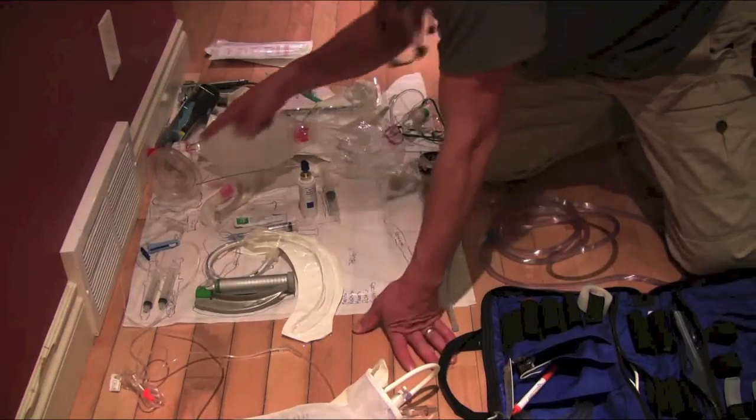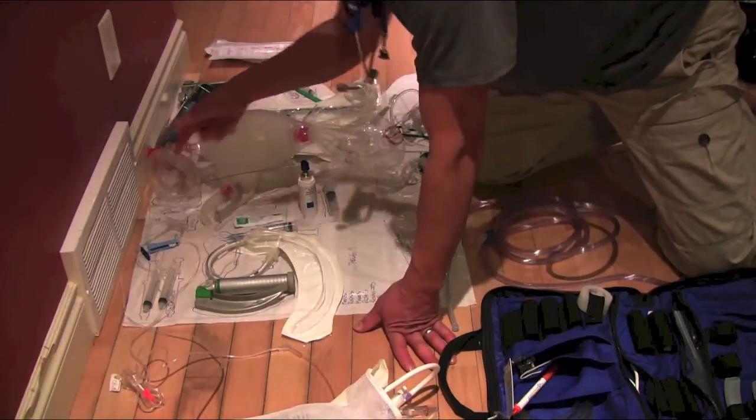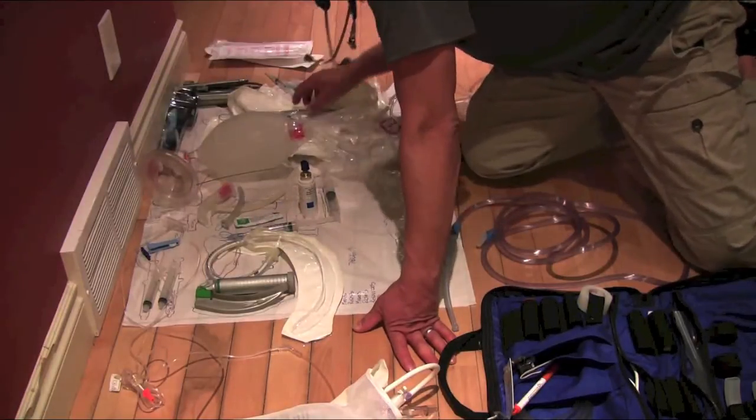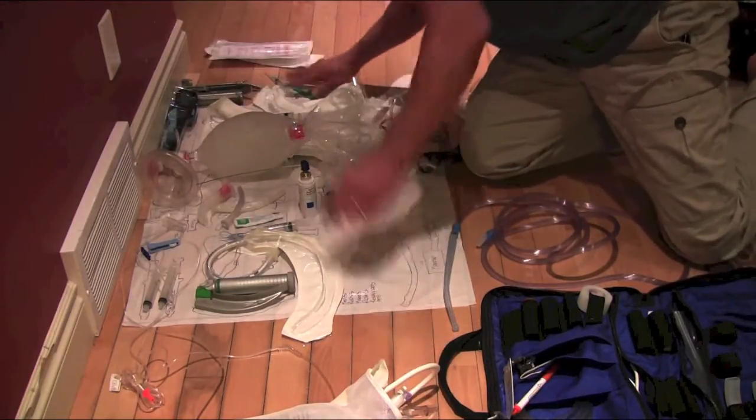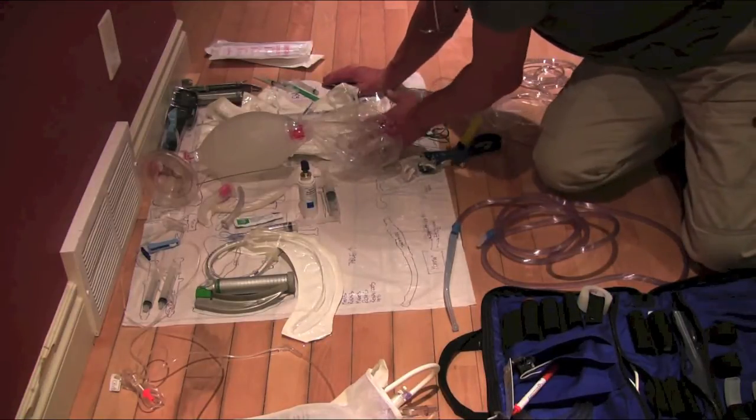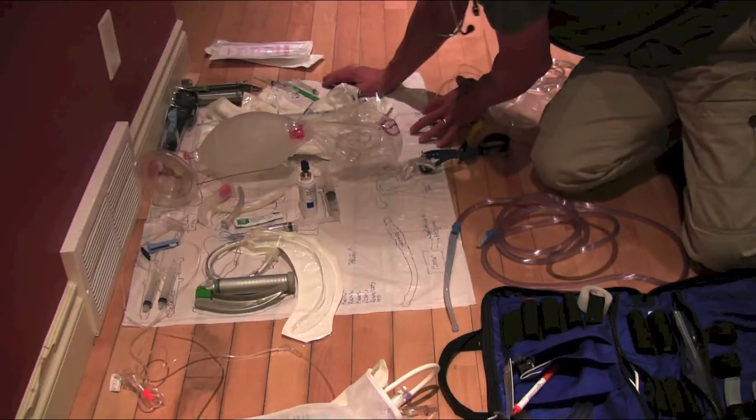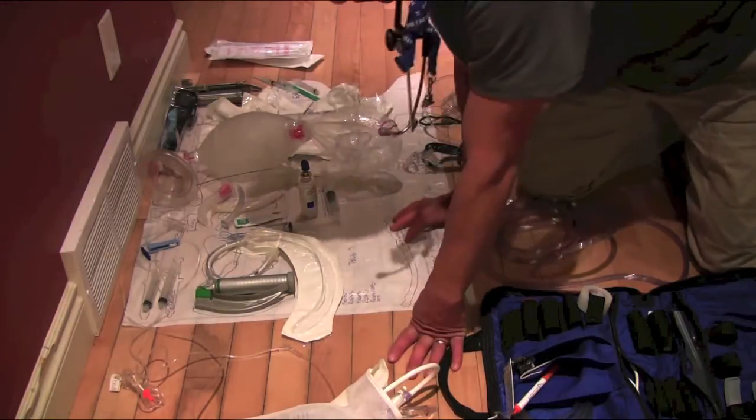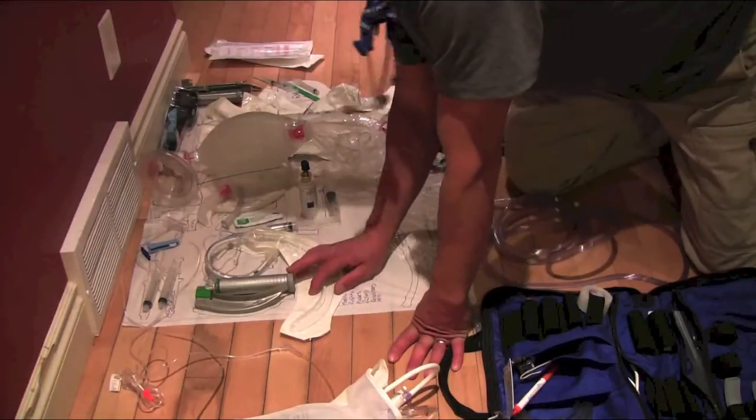I think we've got everything there. We've got our medications post-intubation, surgical airway, got apneic oxygenation, nasal prongs going on, tube ties, stethoscope, suction. Now we go back to here.